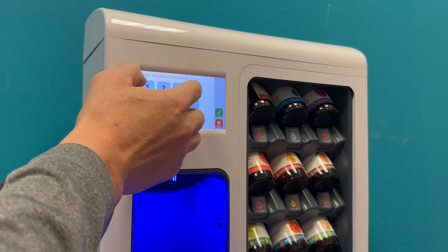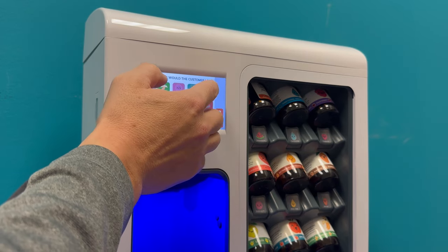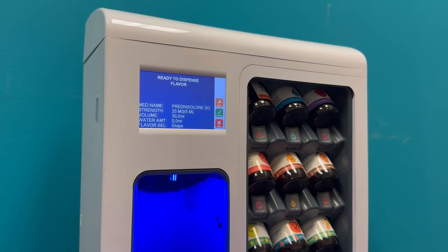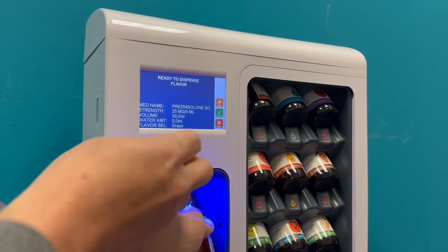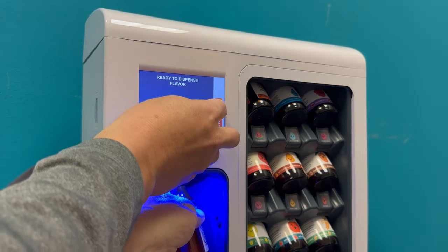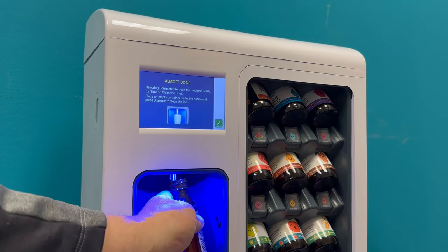Enter the volume of the medication, then select the customer's preferred flavor. Place the medication bottle in the dispensing chamber and press dispense.